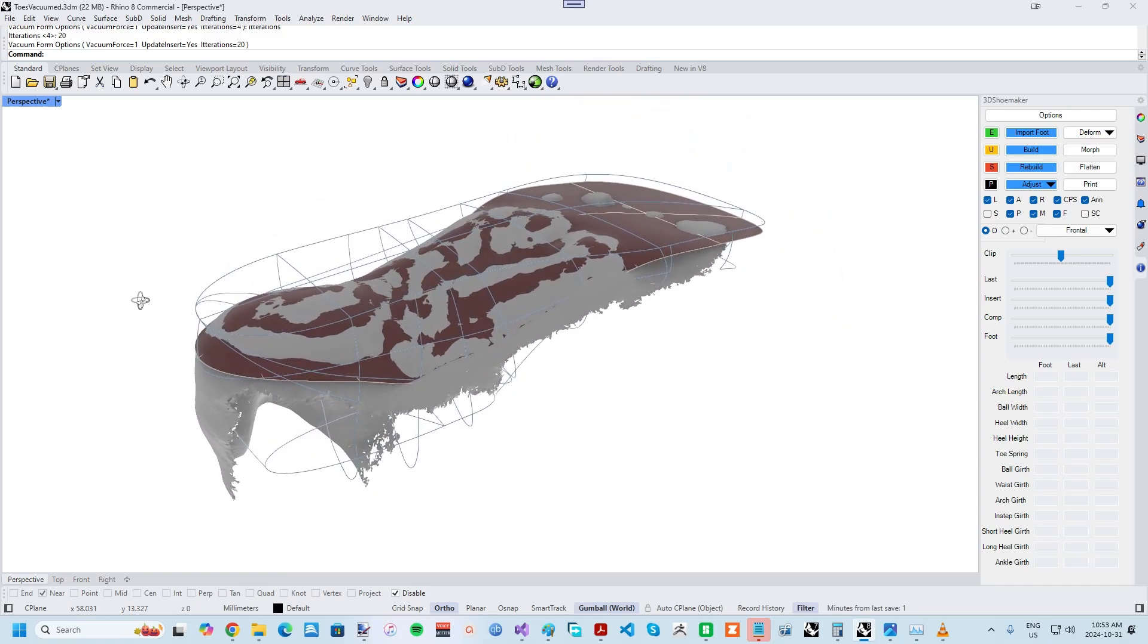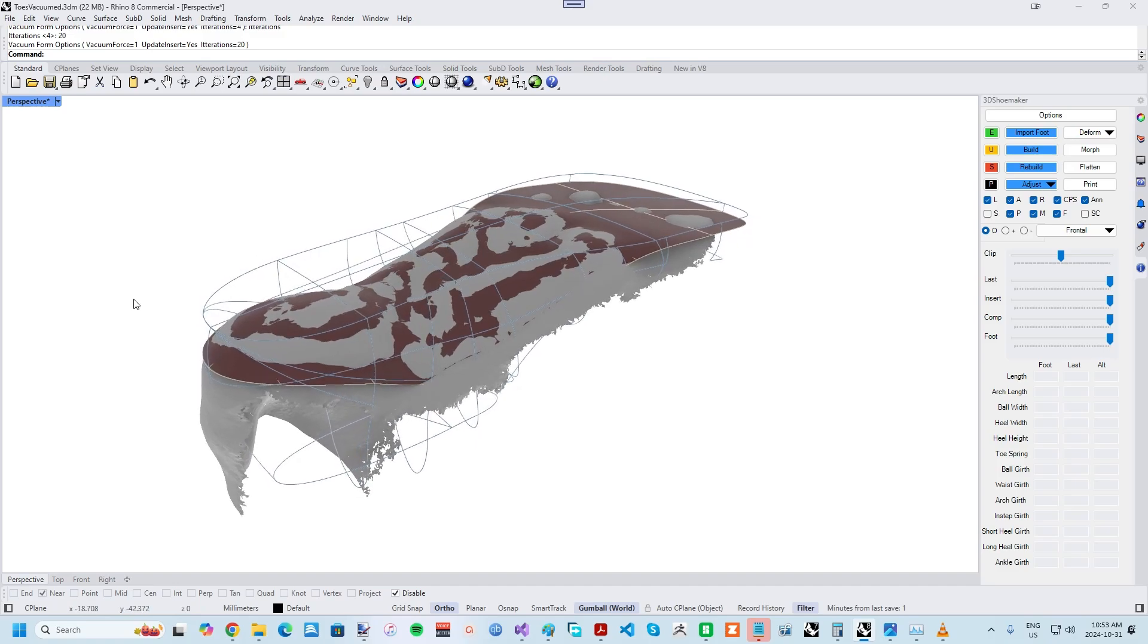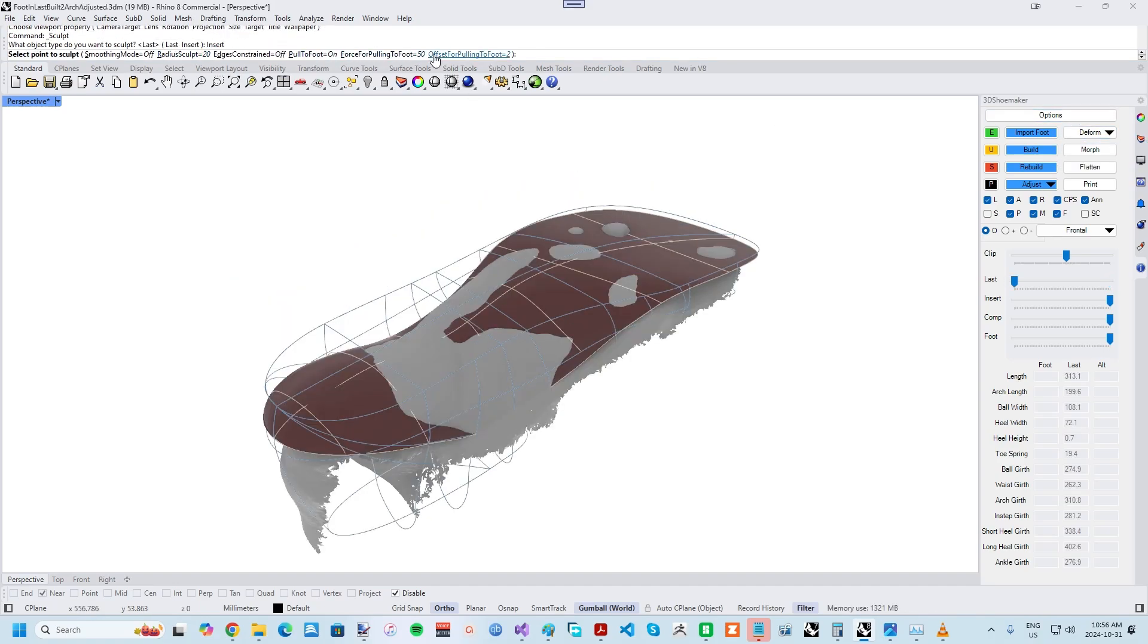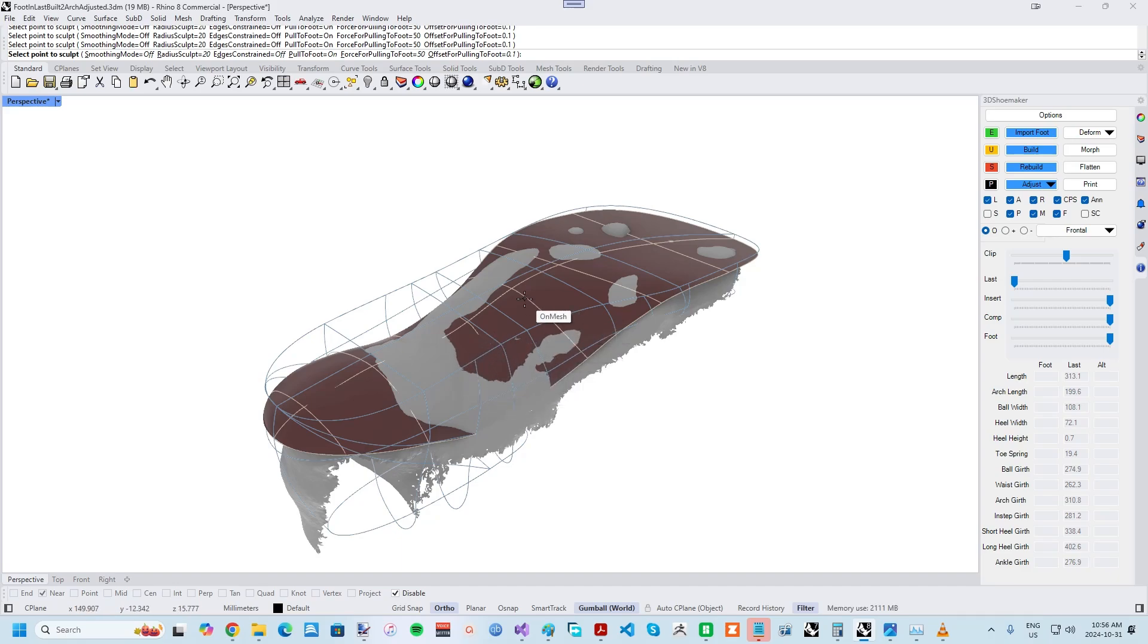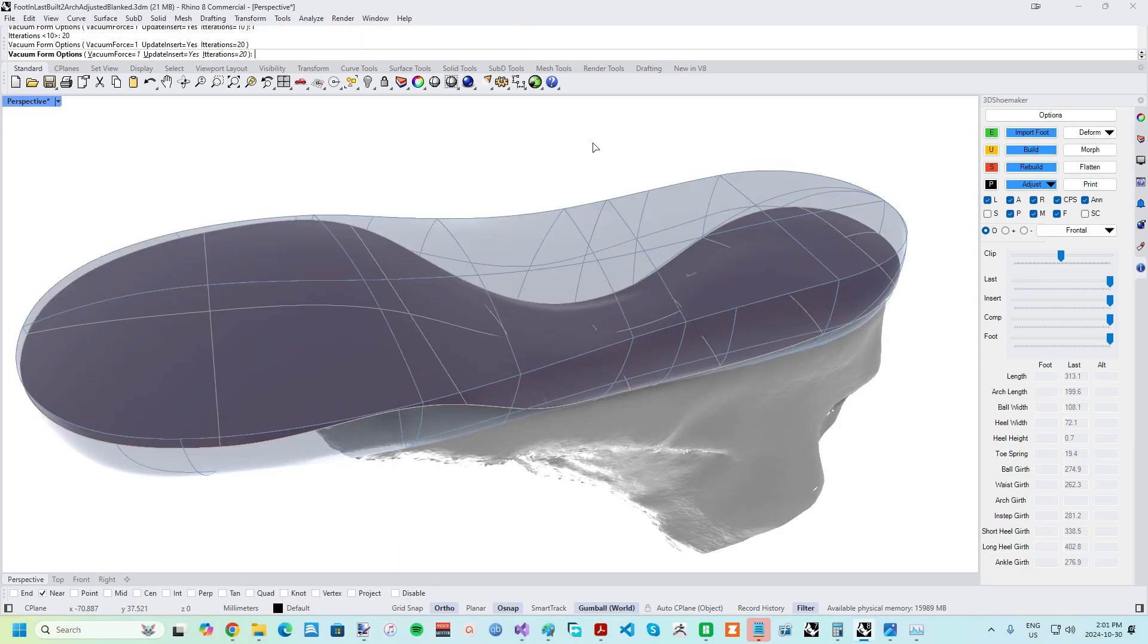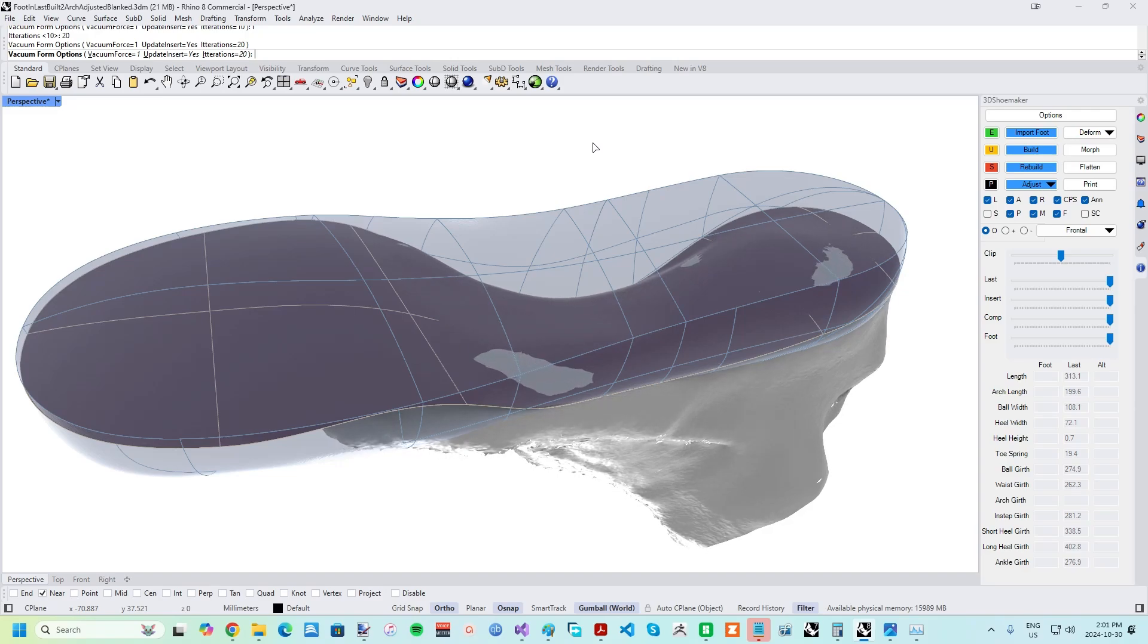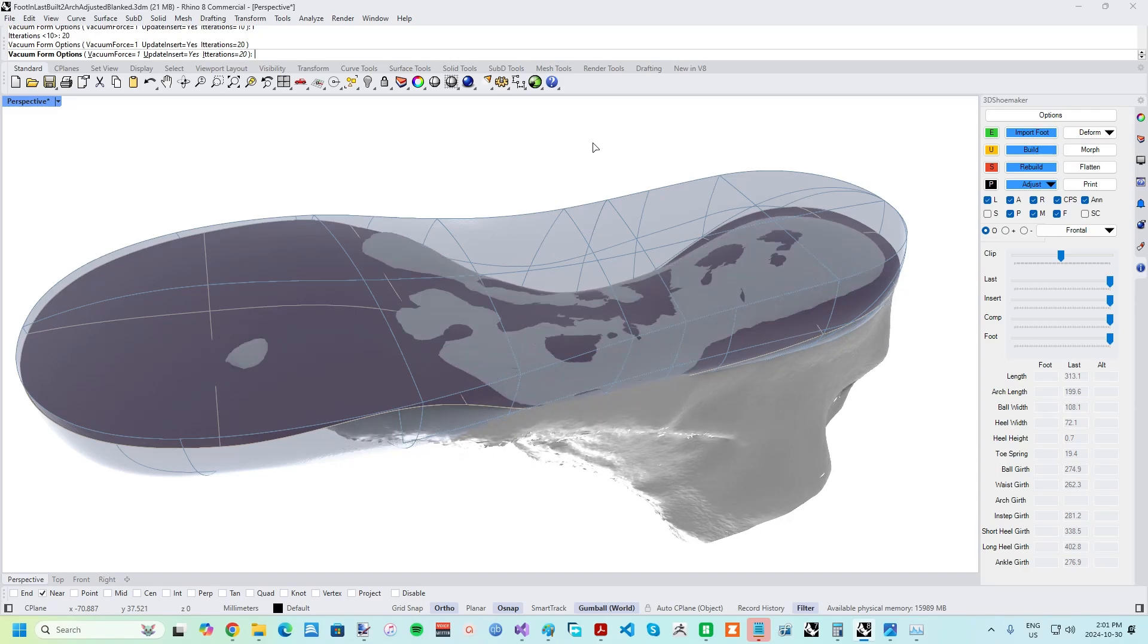Nowadays, it is mostly done with 3D scanning, some software for the design work, and CNC machining or 3D printing. With the introduction of digital sculpting tools, the 3D Shoemaker software became capable of doing the design work part of the process, albeit still somewhat in a manual and time-consuming way. The new automated vacuum forming tool improves upon this, allowing for the creation of precisely customized orthotics in mere seconds.